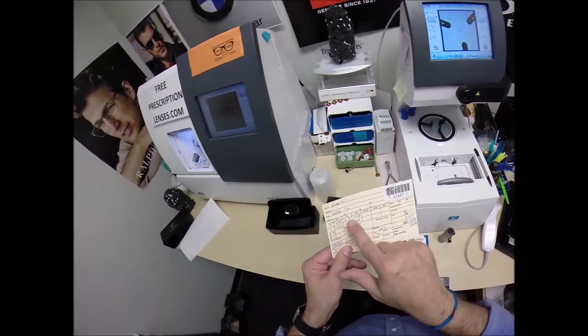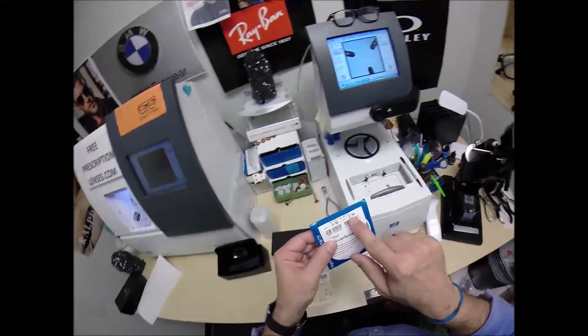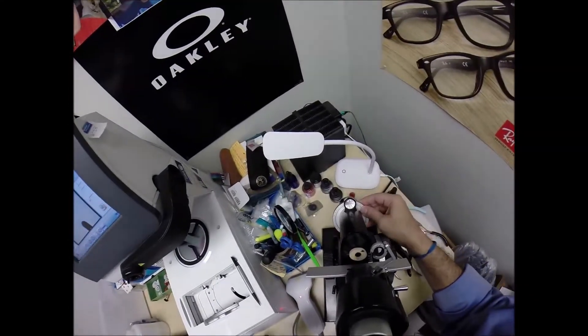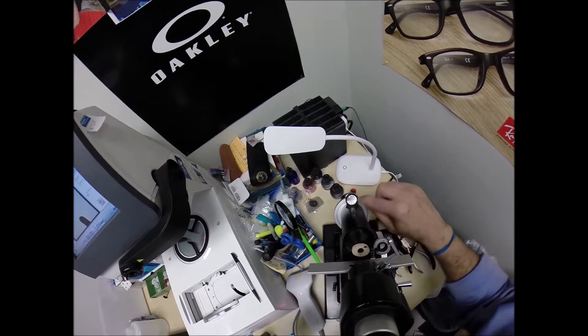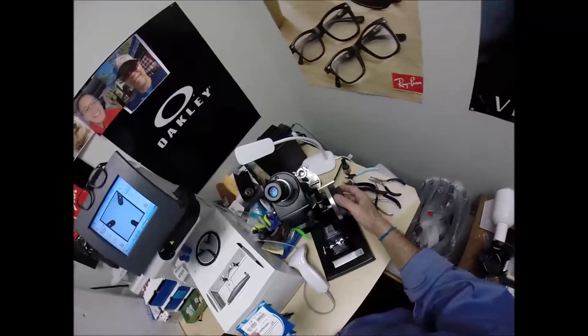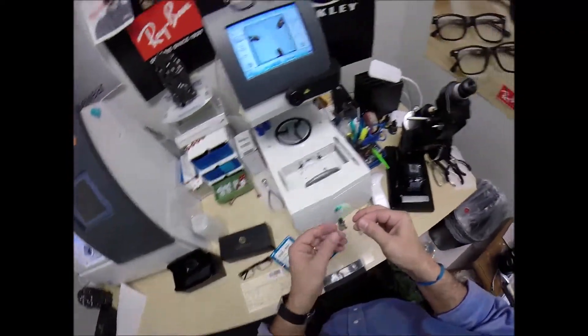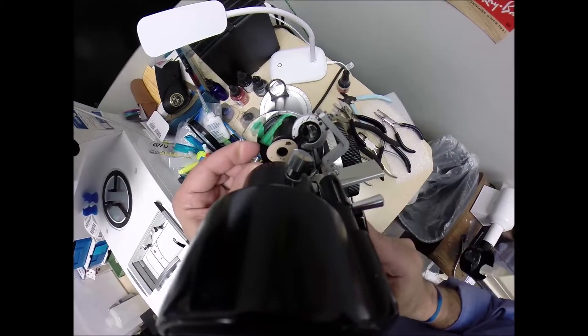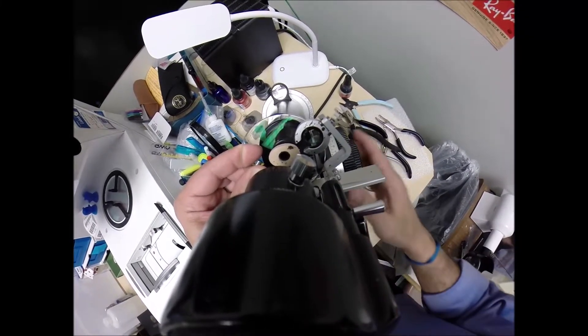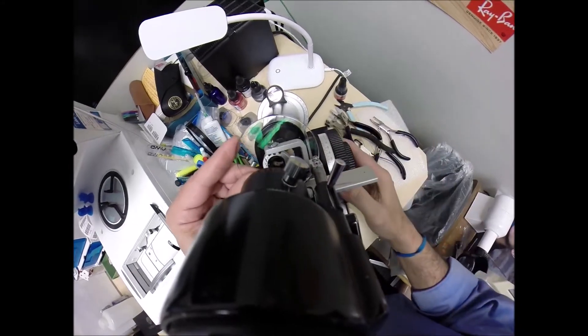The computer starts at 32.5. So I only have to tap the minus button one time. I do want to raise the optical center up to 18 because you actually look through the top quadrant of the lens. So I'm going to move that up just like the crosshairs of a scope. I measure vertically and horizontally to put your exact prescription dead center in front of your eye. Now your prescription reads minus 50, minus 250 at 28.